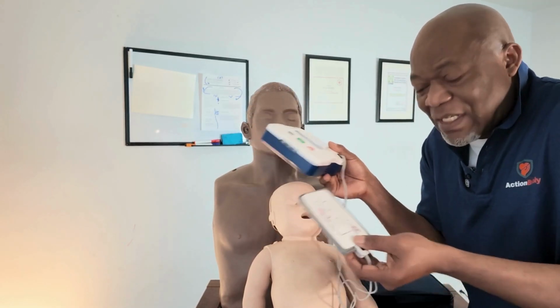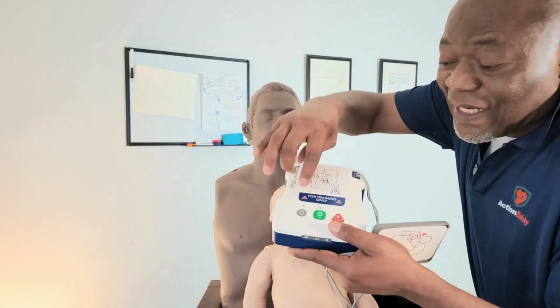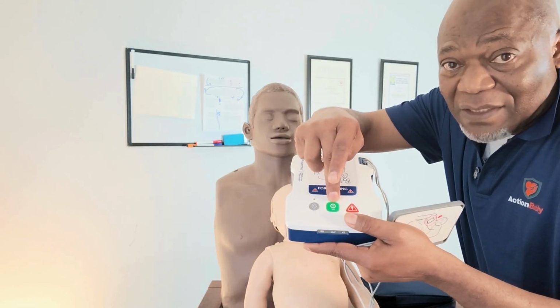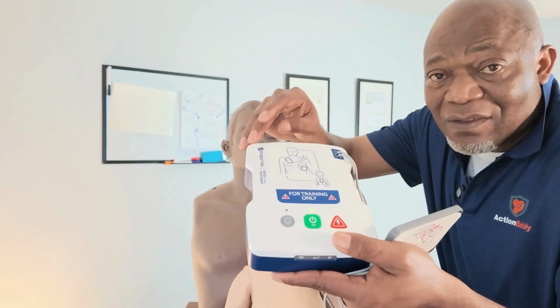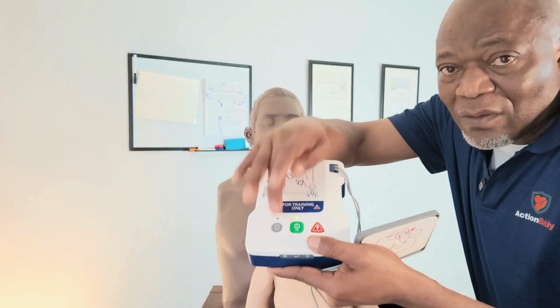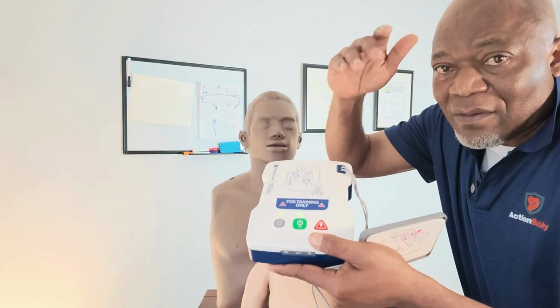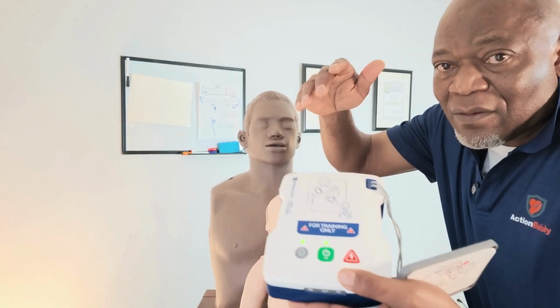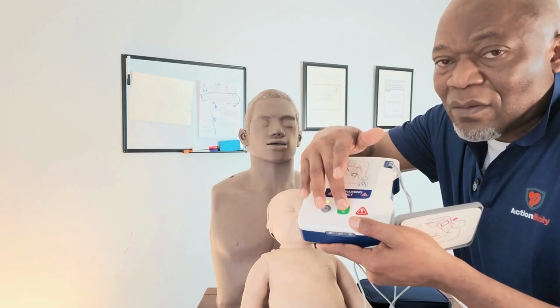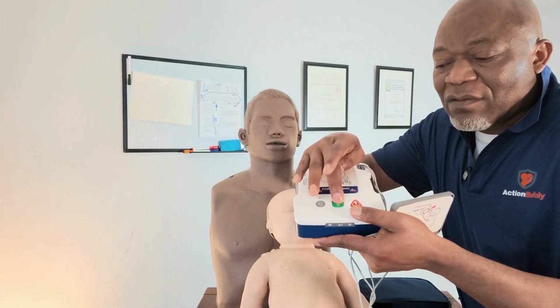You see how we do it now. As soon as you put it on, I have indicated here, this design here is for kids. Press the button on. Adult patient. You see? If the patient is a child, press the child button. Child patient. Remove the child's shirt. Remove packet and apply pads onto child's bare skin. Apply pads to child's back and chest. Let me switch off. As you can hear, let me switch off.